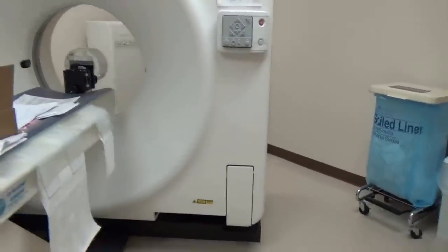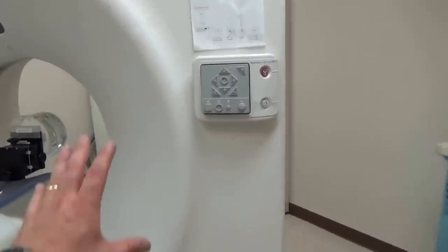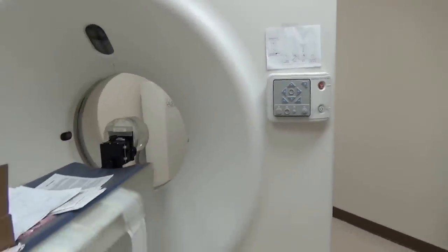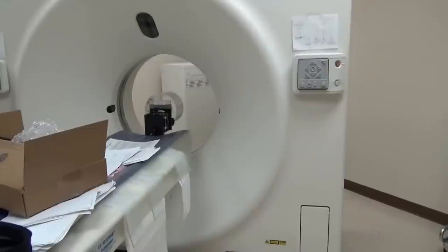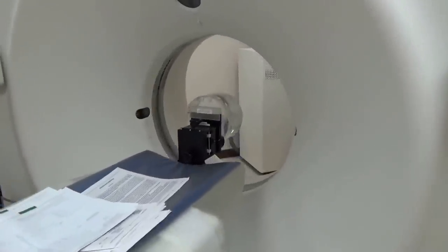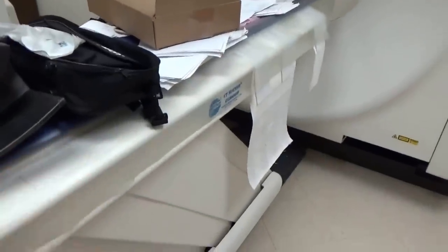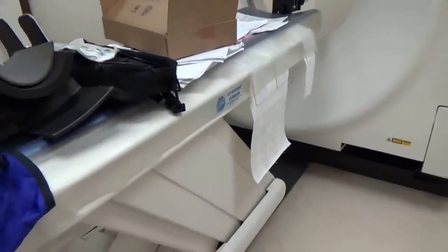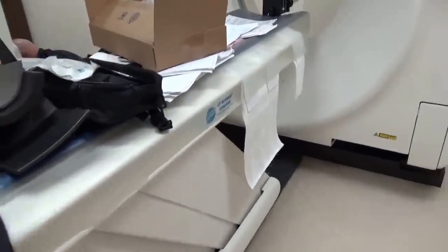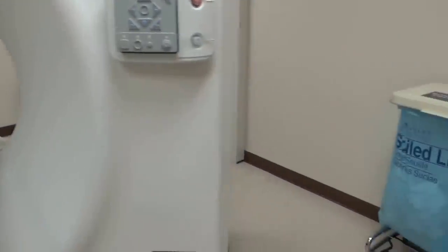Basically, it's a piece of x-ray equipment. This whole big part here is called the gantry. A lot of you call it the donut because there's a donut hole — that's where the patient goes. We actually have an image quality phantom mounted up on the table right now. This part right here we call the cradle, which is the table. It can go up and down, and it can drive the patient in and out of the bore.